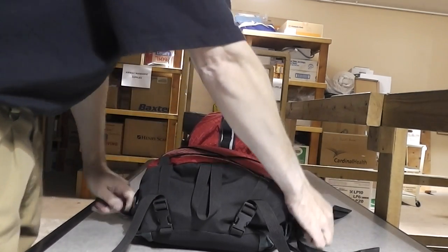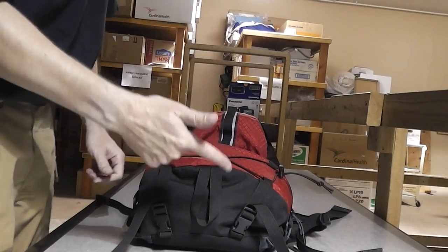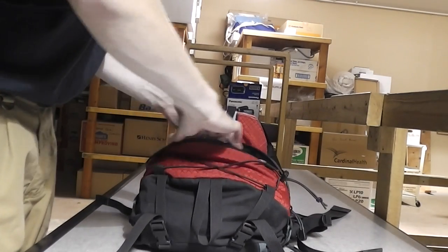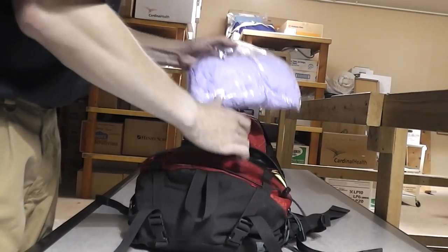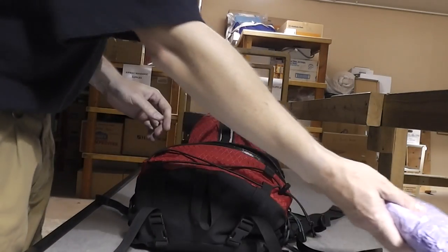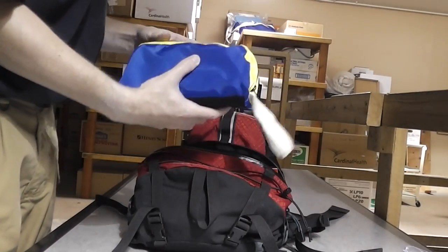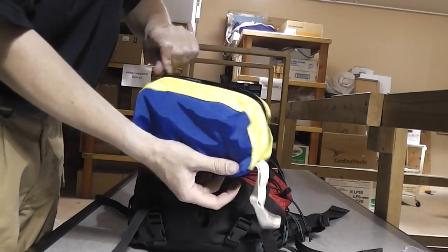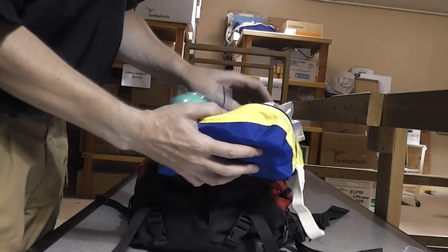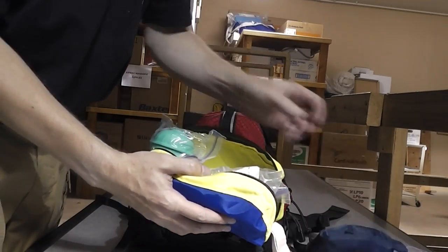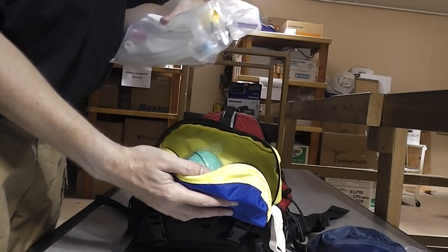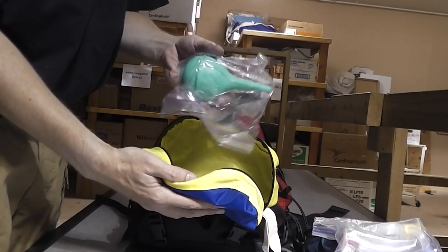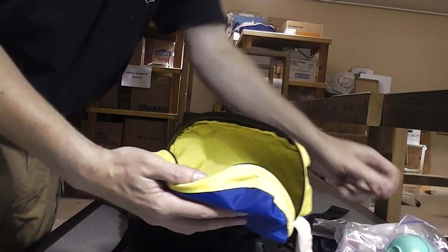What I consider critical is severe airway, breathing management issues until I can get them stabilized. Gloves, of course. This is my airway pouch. There's all my basic airway stuff, which includes pocket mask, OPAs, NPAs, and a bulb syringe.